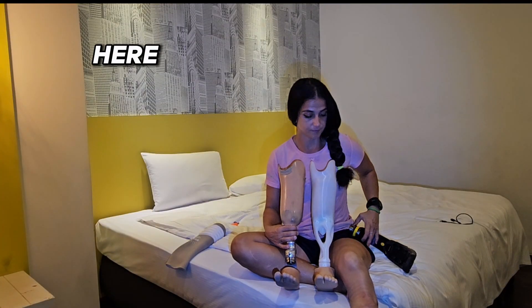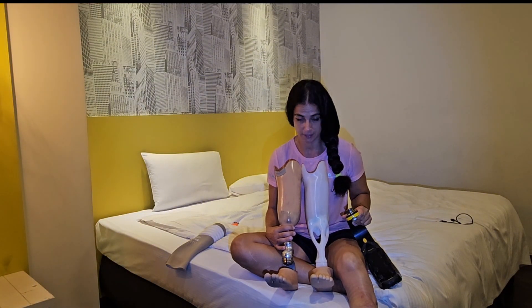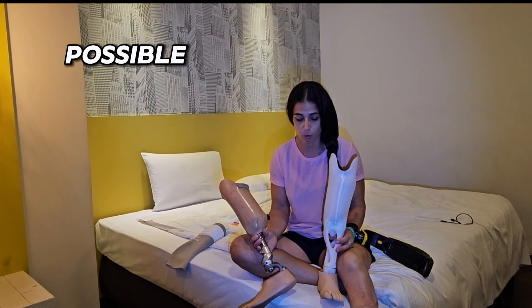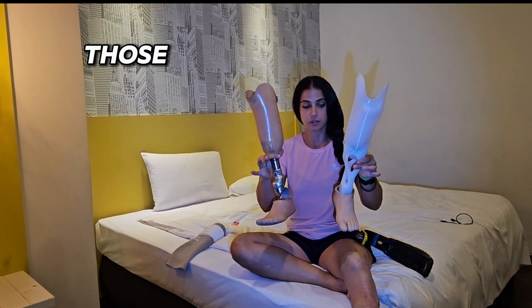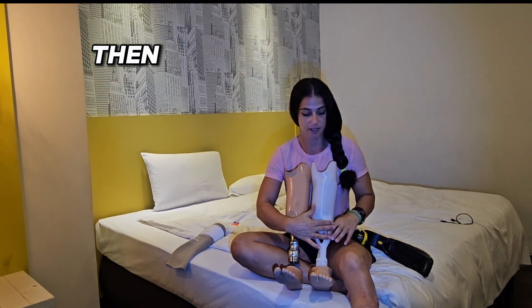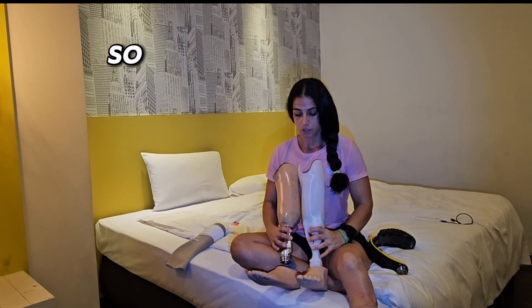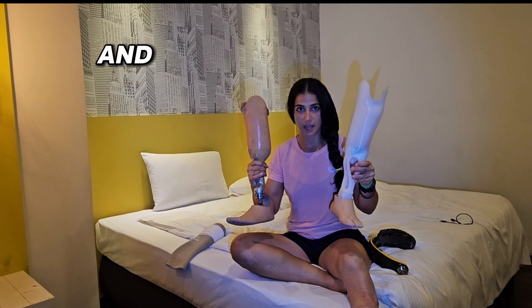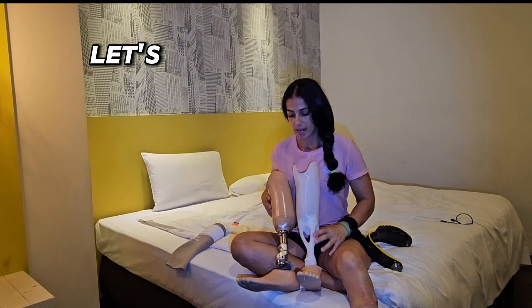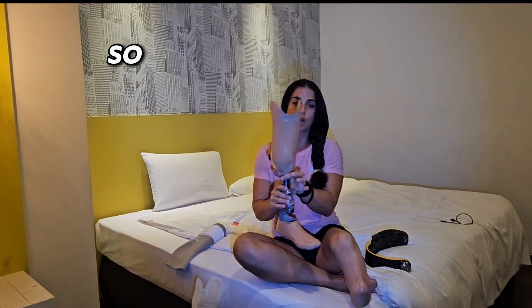As you can see, we have two legs and three feet. Two legs, three feet — how is that even possible? Those two legs are obviously very different, and then this is our third foot. So here we have two legs and two feet, and here we have one foot.